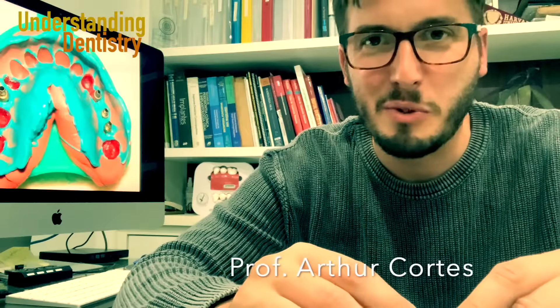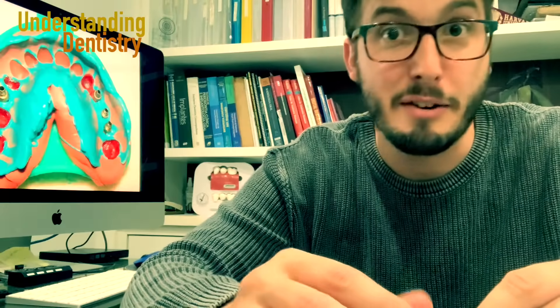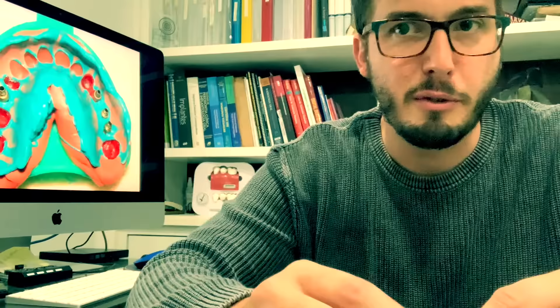Hello guys and welcome to this video to learn a little bit about receiving the crown from the lab, either ready to install or for trying in the patient. If you are using conventional workflow, then of course you did an impression like this with addition silicone.